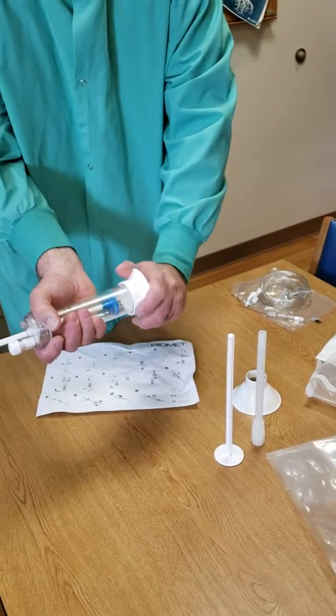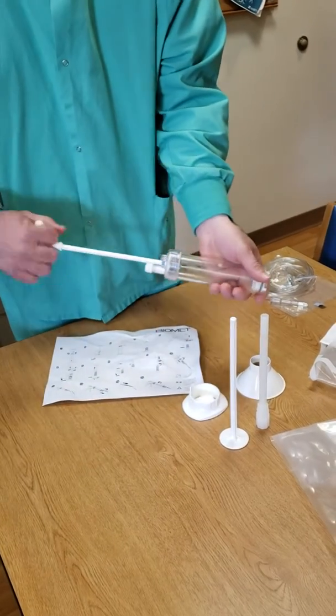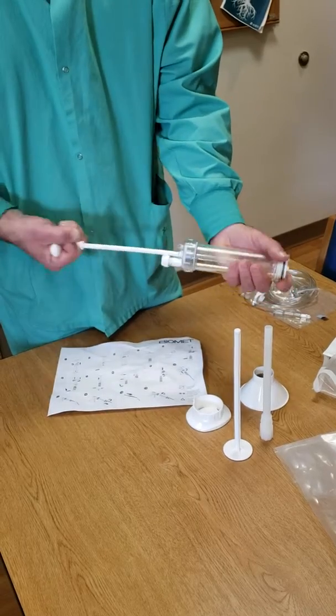At that point you can take the bottom off, or you can still leave it on. Then just rotate and plunge for a minute. It's a minute and five seconds.